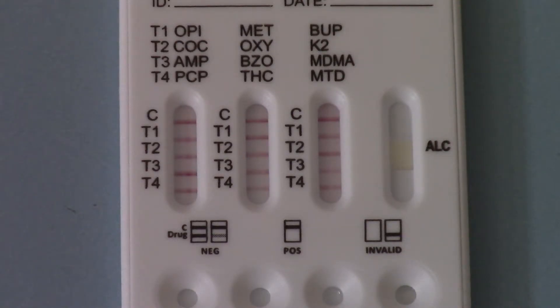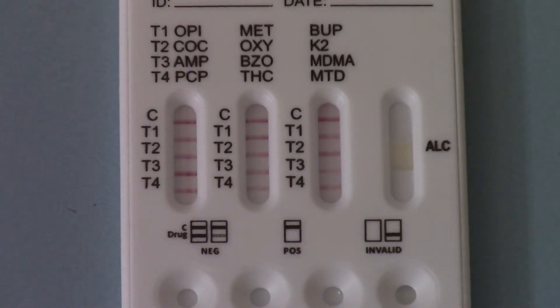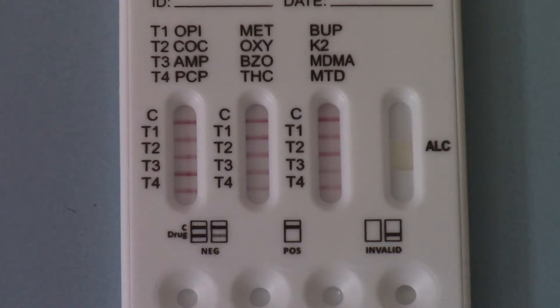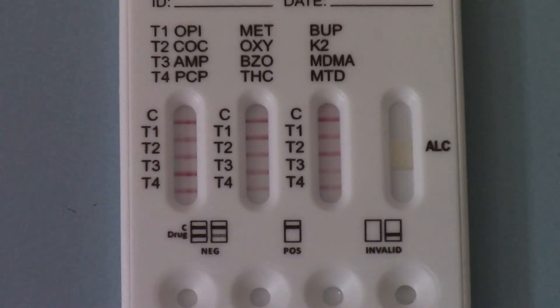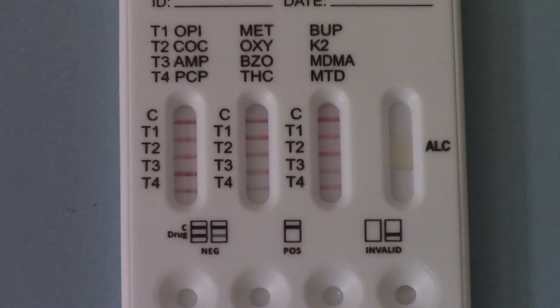If you had a positive test on any of those abbreviations, you would not have a test line showing against the appropriate abbreviation.